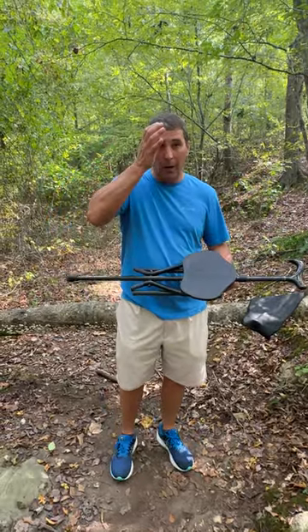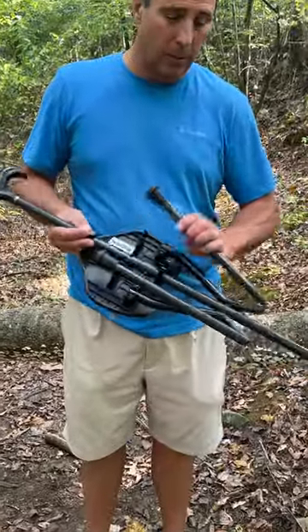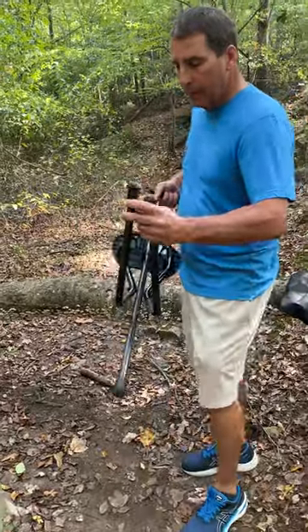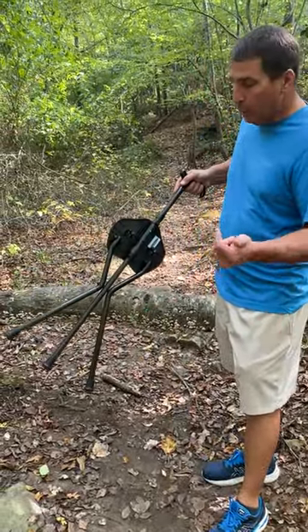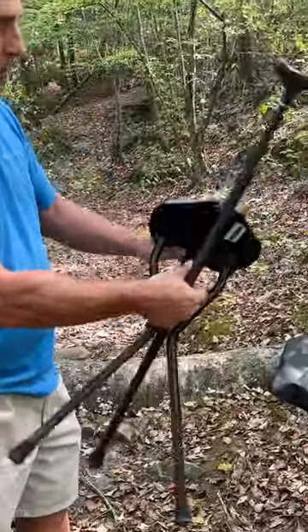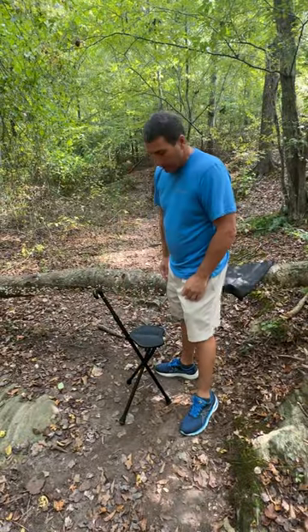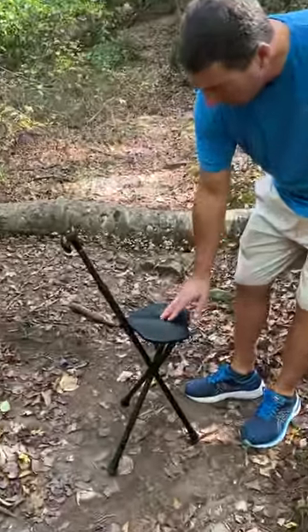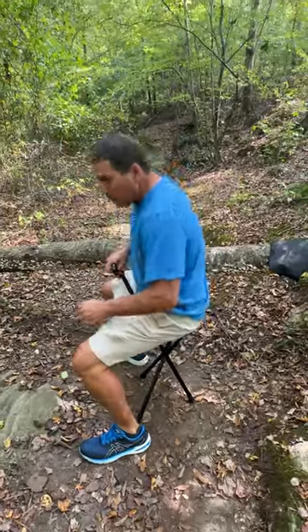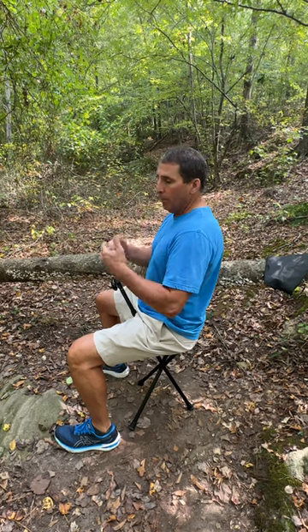If you want to turn it into a chair, once you've gotten to where you're at you can simply do the legs manually or it'll do it automatically. That quick — it just pops right into place. The seat deploys by just a quick little snap. The way we sit on it, we straddle the chair. It's got a textured, ergonomic, very comfortable seat, and you want to grab it and straddle it this way. That helps you get up and down and gives you great posture.